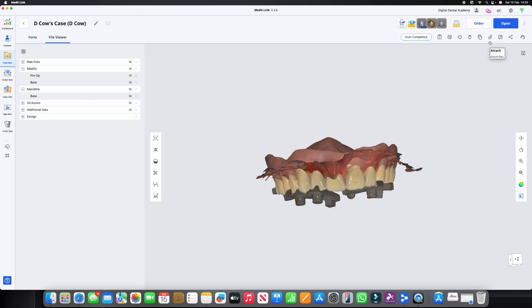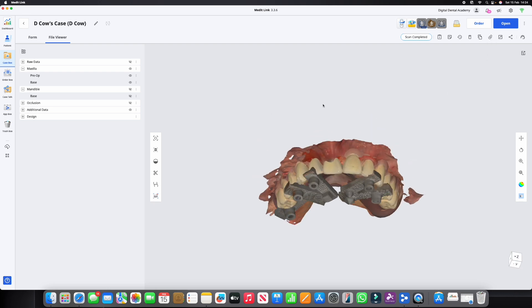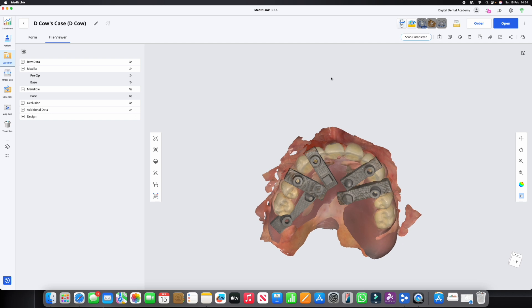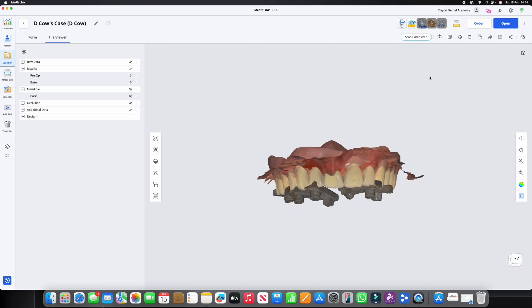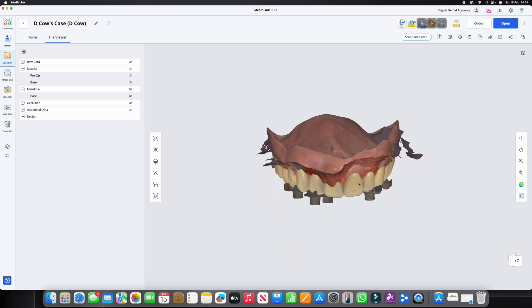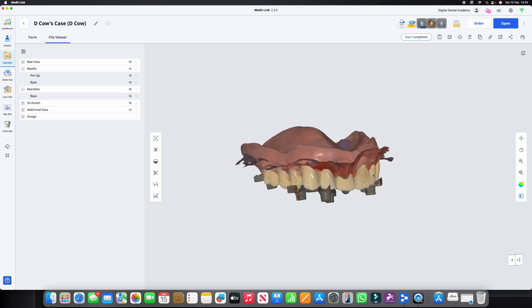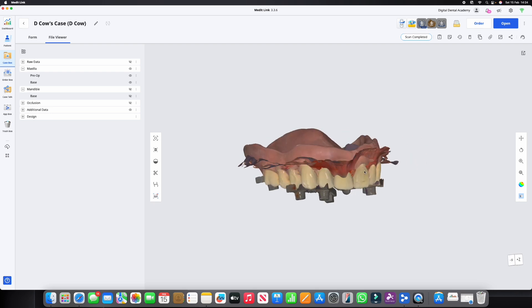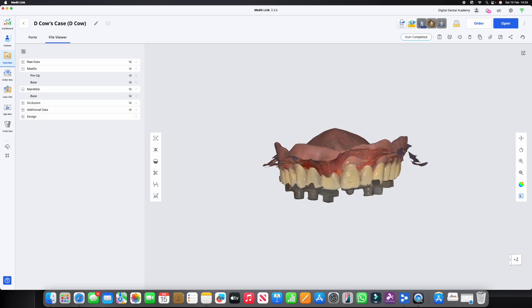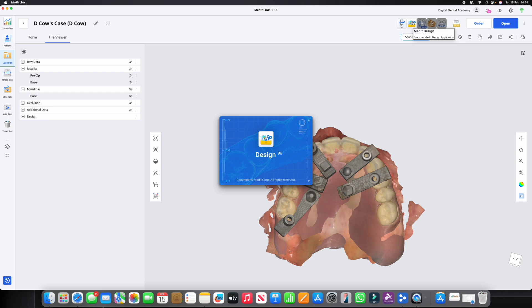If we attach anything to bring it in, it can be STLs, OBJ, whatever, then we can use the same protocol to match everything in. It's super nice and easy. So now we know what we've got. Let's see how we're going to take this scan and turn it into an aligned whole object.